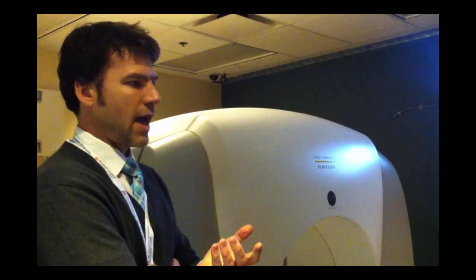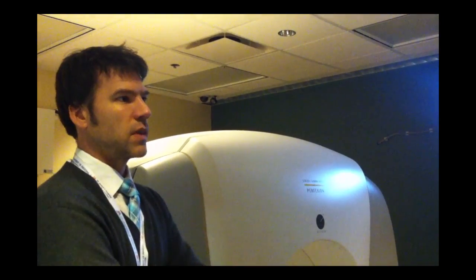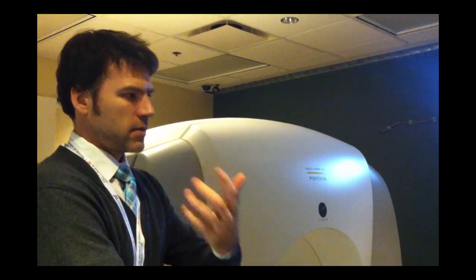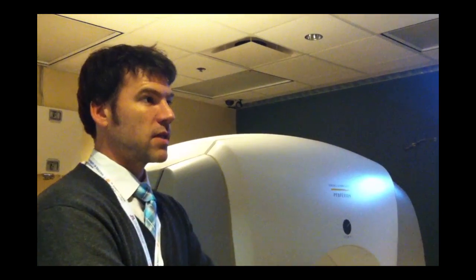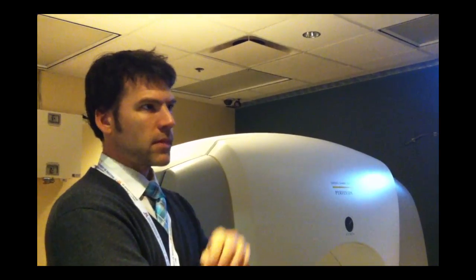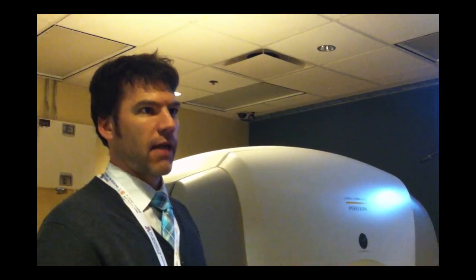Currently, the software simulates the head as water, though that's not actually the case — there's bone, different tissue, and sometimes air inside. The software has been upgraded over time to use a CT scan, which provides information about what material is present — bone, different brain matter — and assigns it a value to more accurately calculate the radiation dose, rather than assuming everything is water.